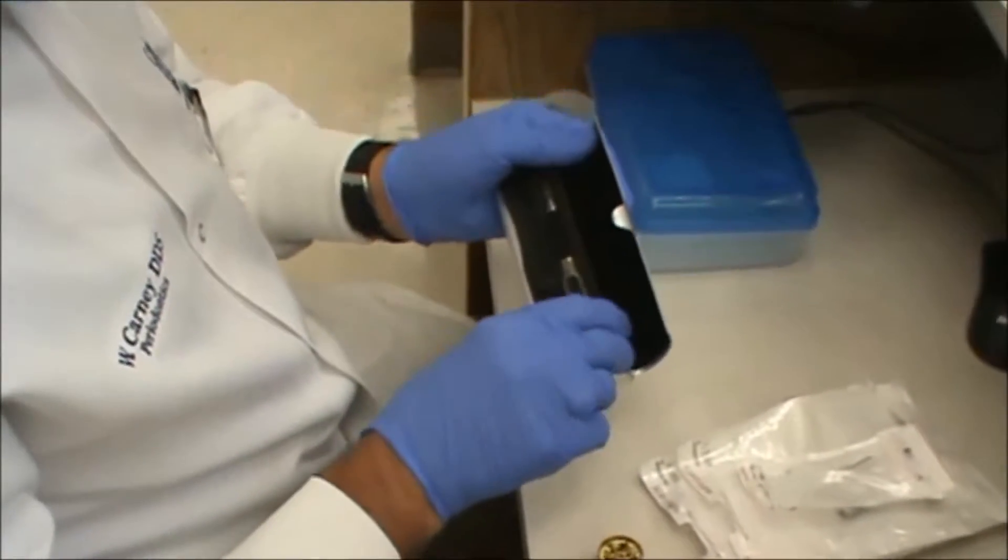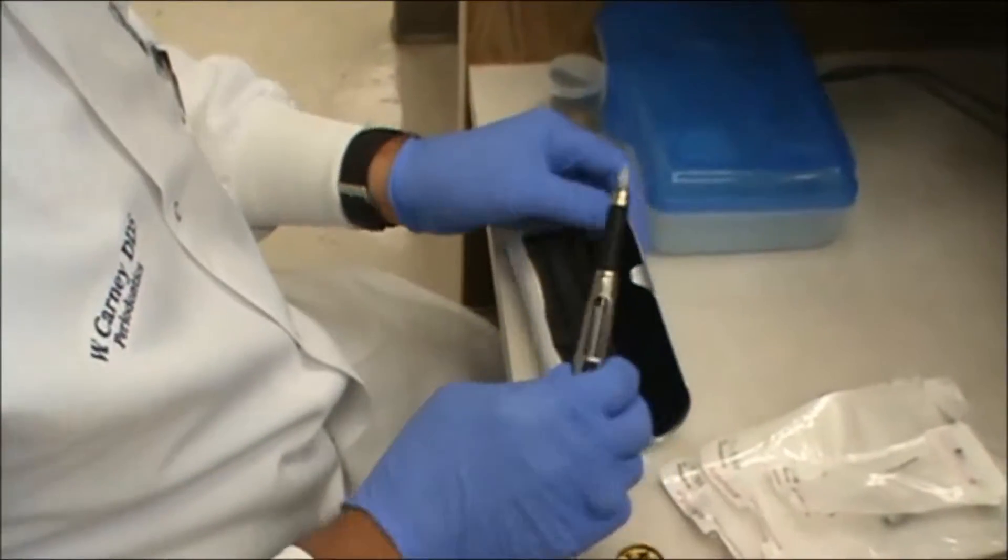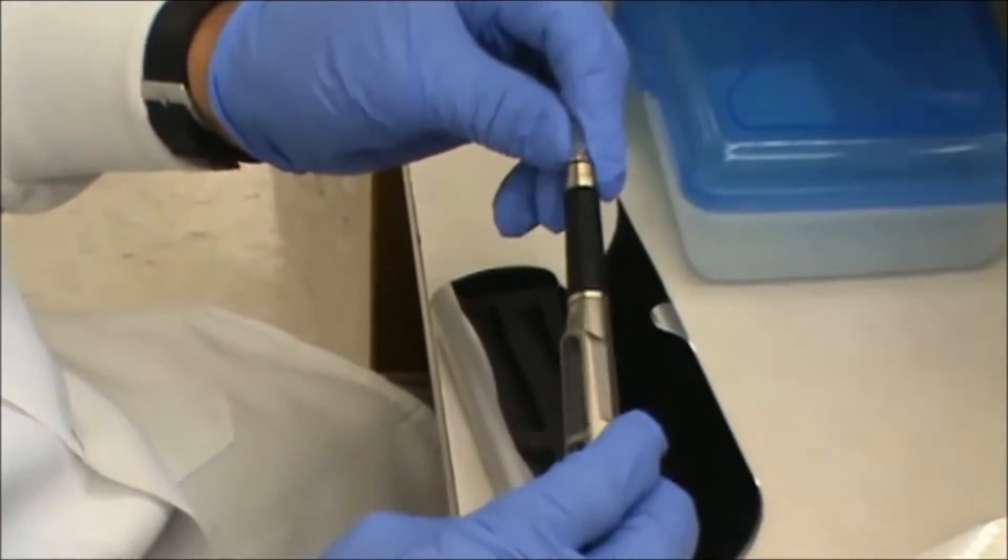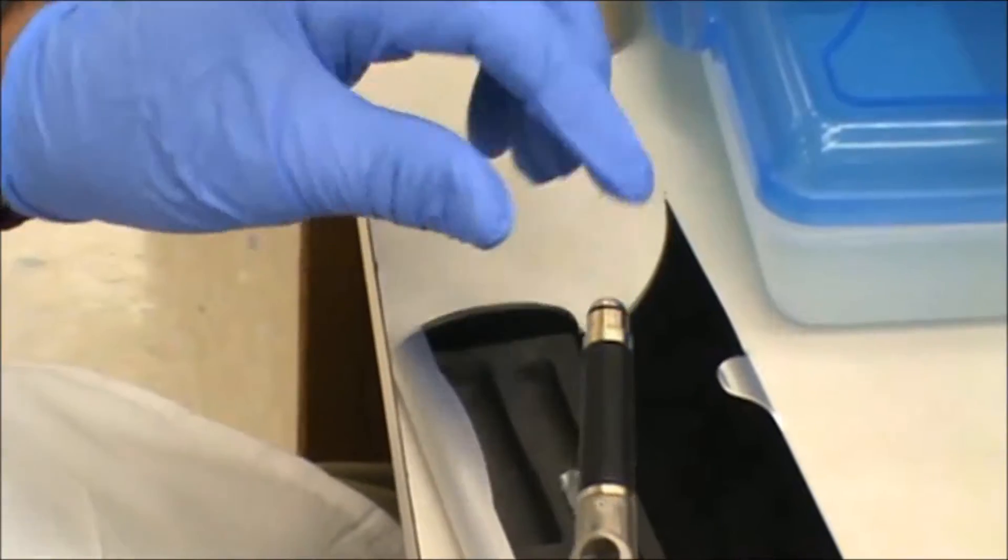We're setting up the laser. Definitely want to hold on to this little plug that covers the laser window. Don't discard it.